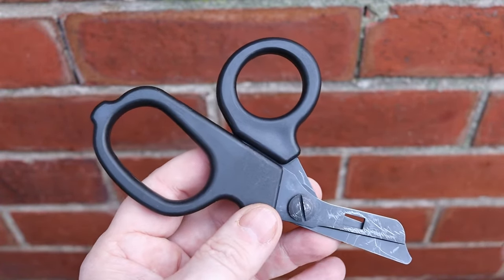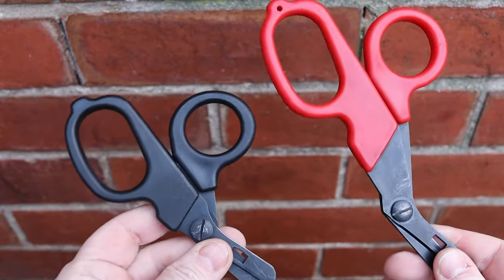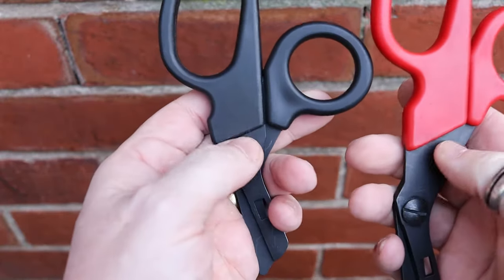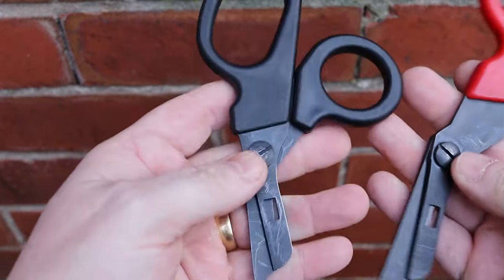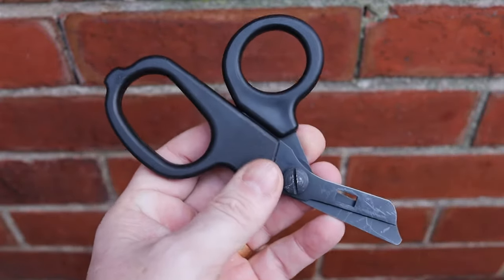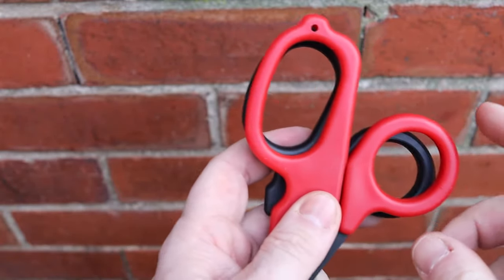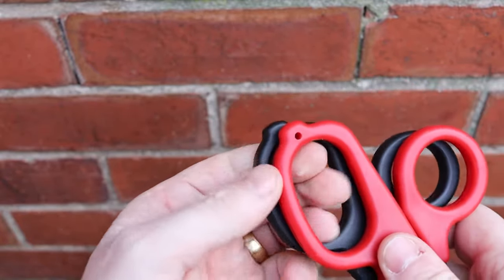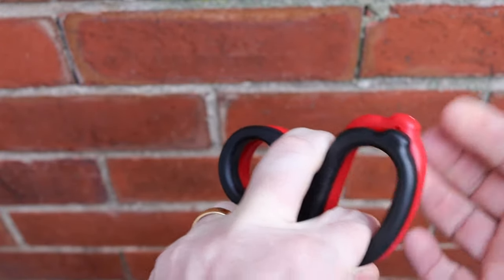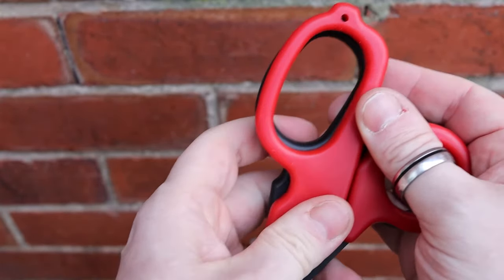If you're in the medical profession, you'll probably appreciate how these can be used in those situations. The size difference is the main difference: the larger version has a 2-inch cutting edge whereas the mini has roughly an inch and a half. The handle size is almost identical — the website says no difference, but there is a slight 1-2 millimeter difference. It's really splitting hairs.